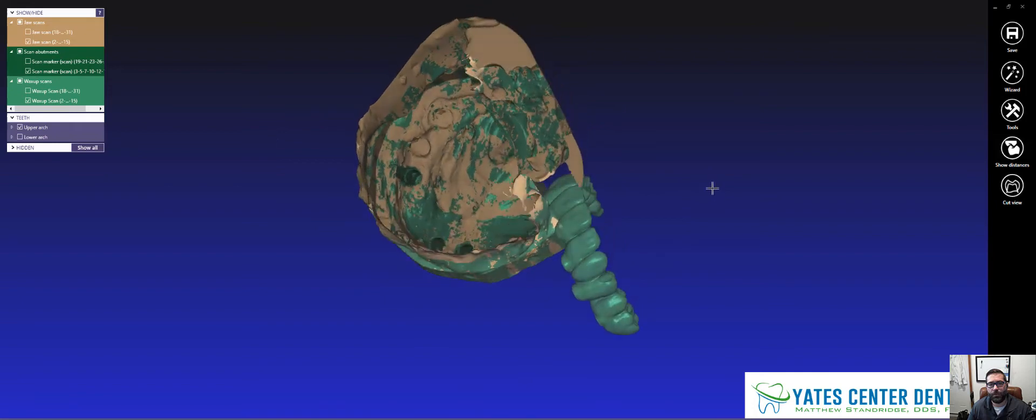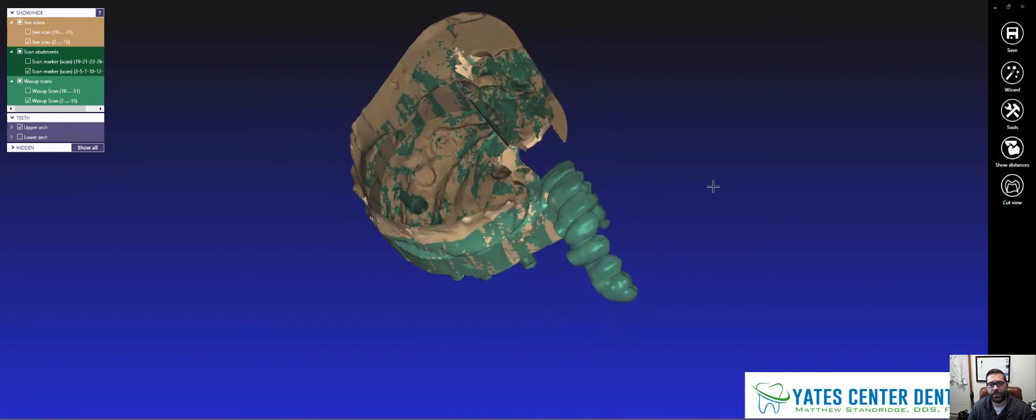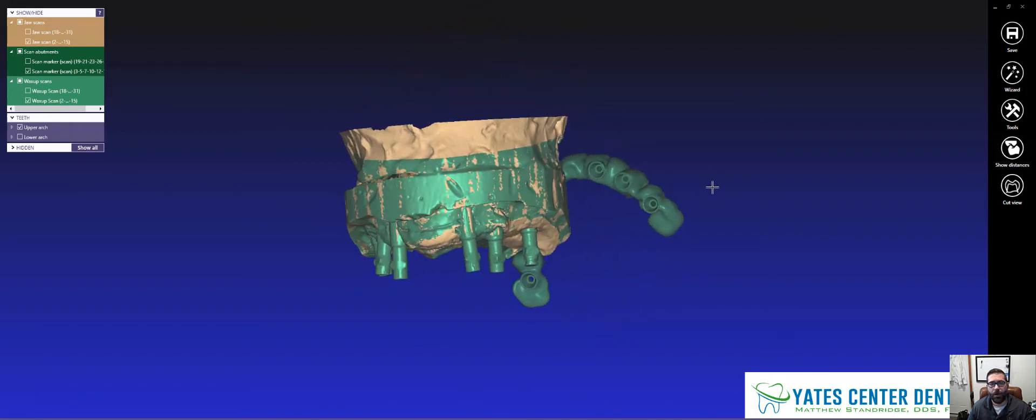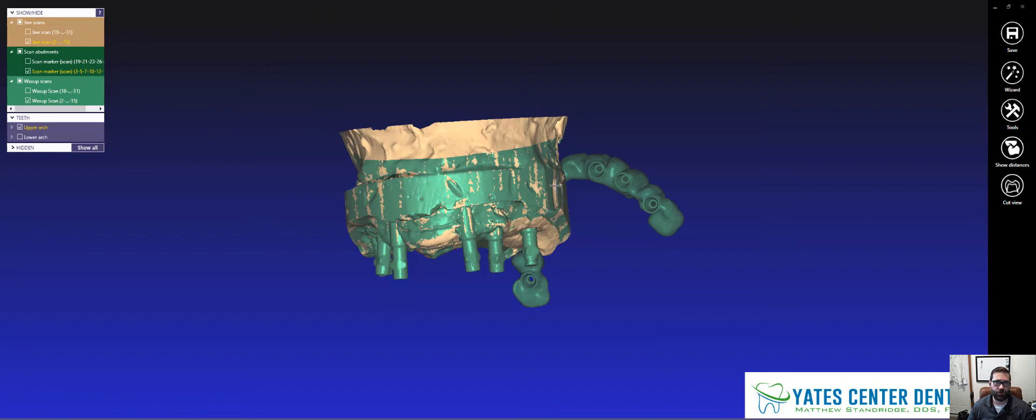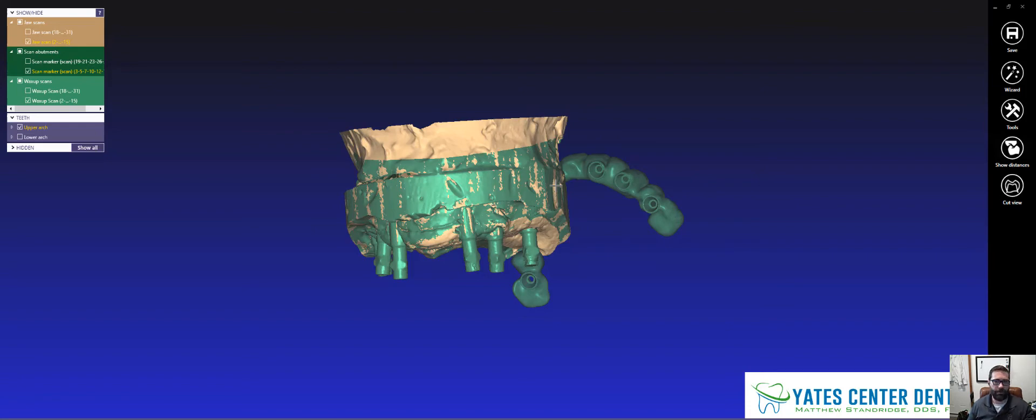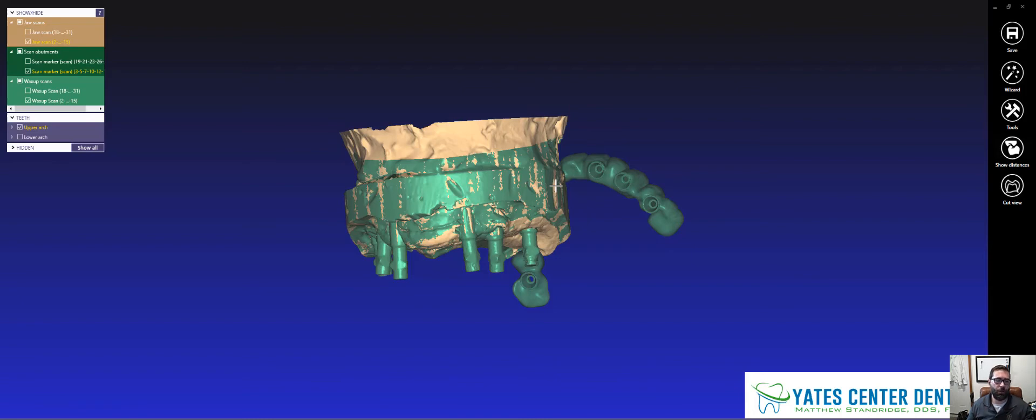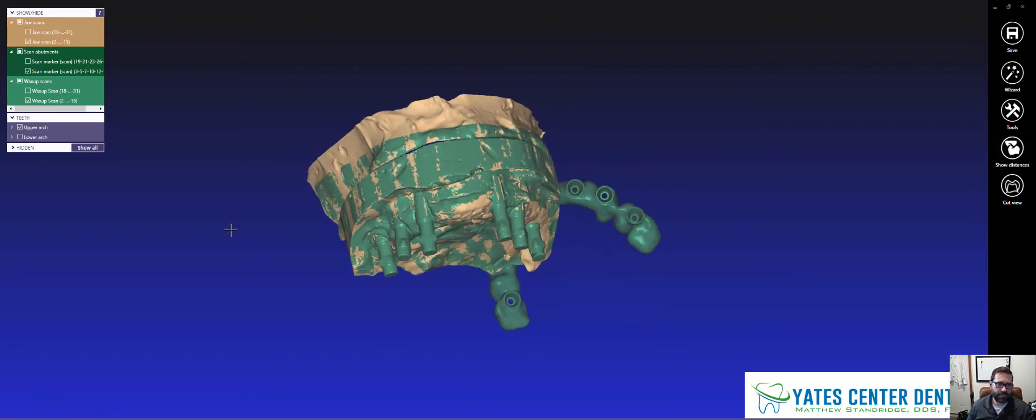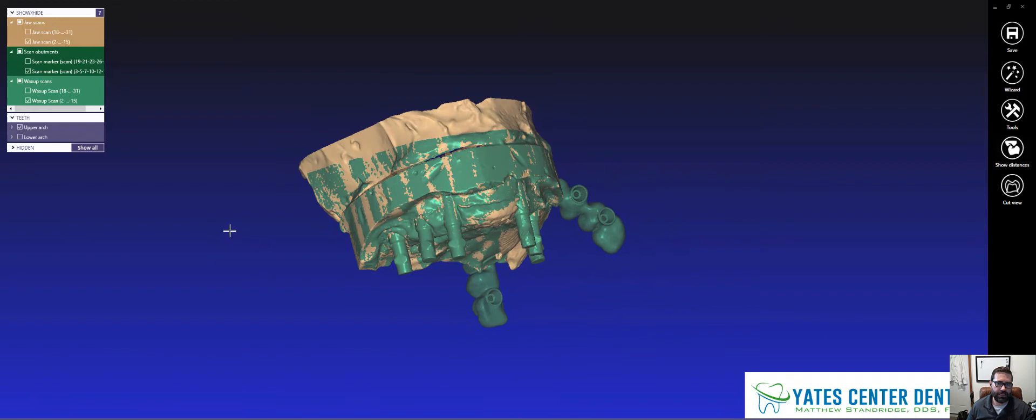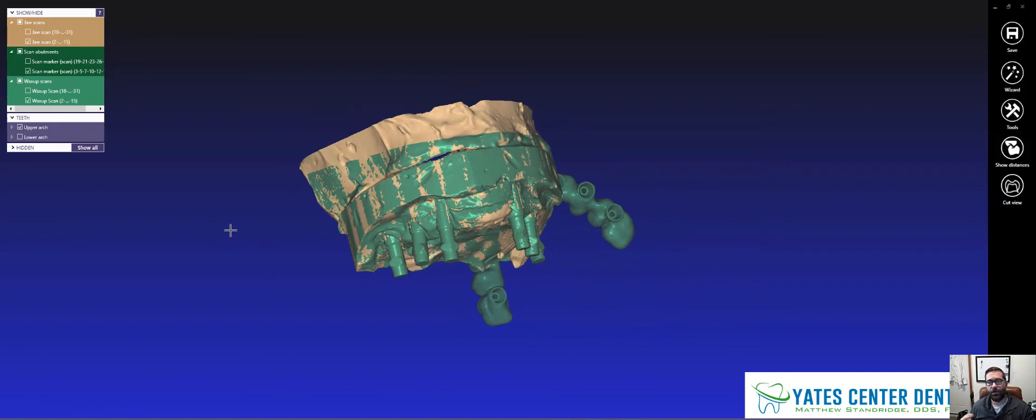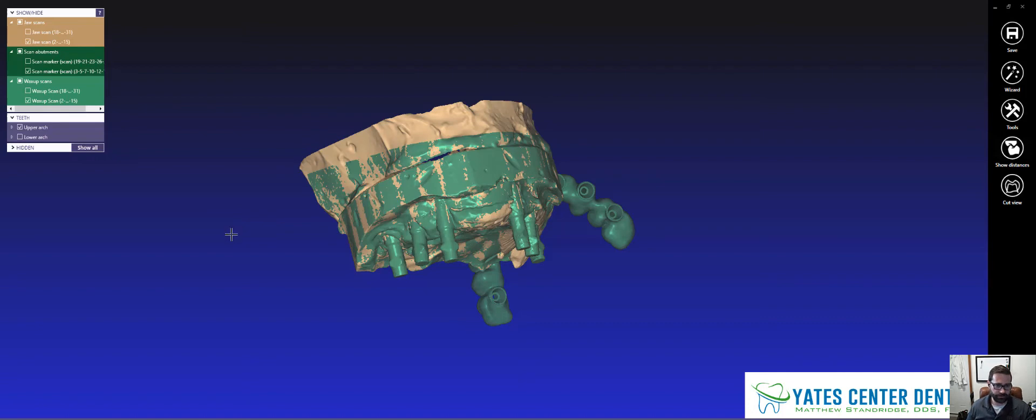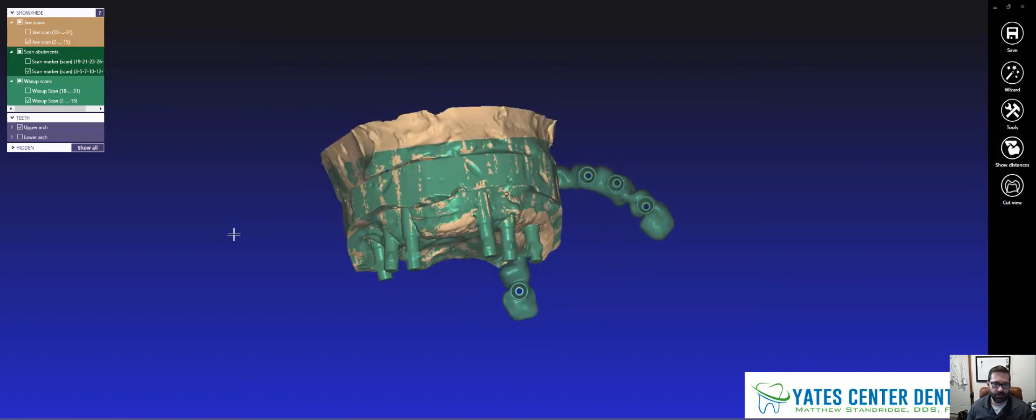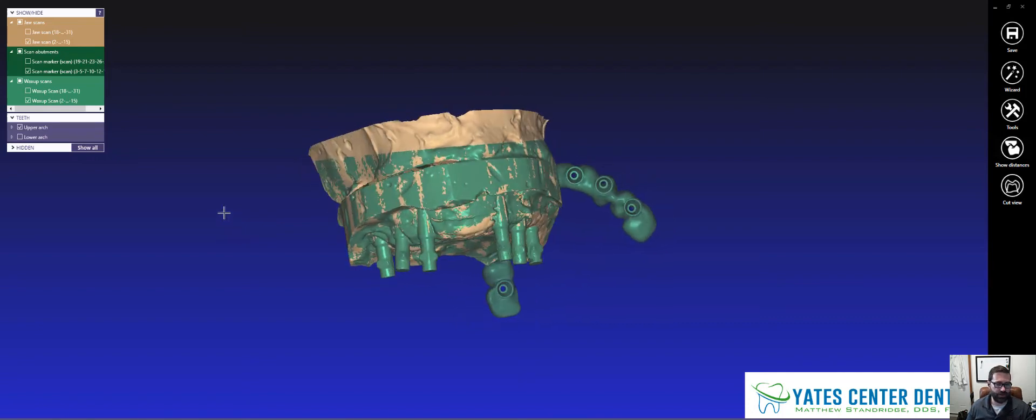Now I need to align this upper design from before, and I'm going to use that as my new wax up, because basically we have to redesign. I need to open them up a little bit more. The teeth are a little too, he's a little too overclosed and we need to open up his VDO a bit.